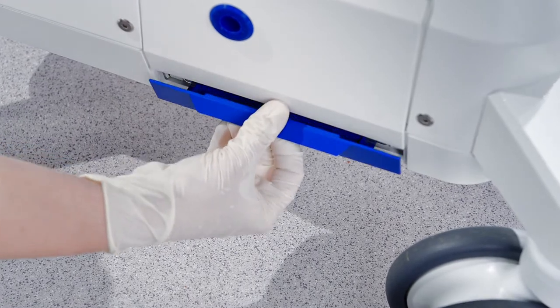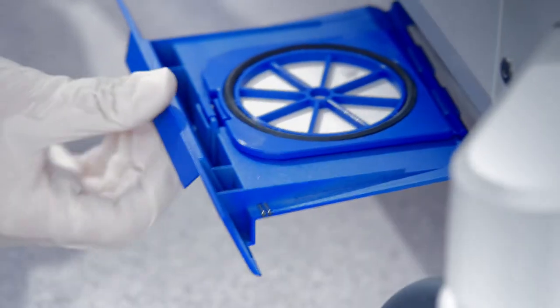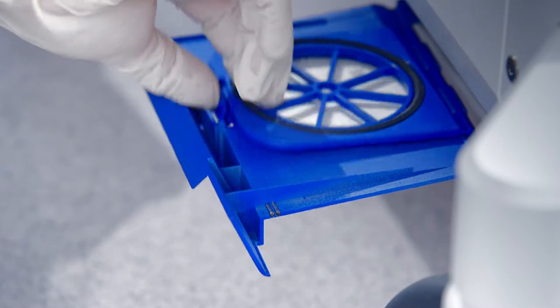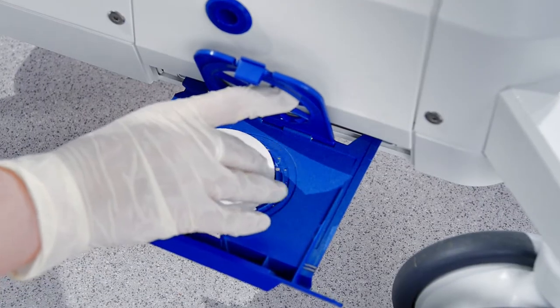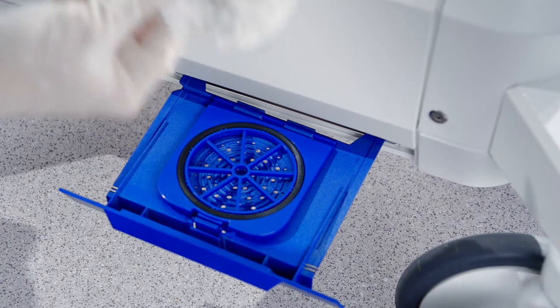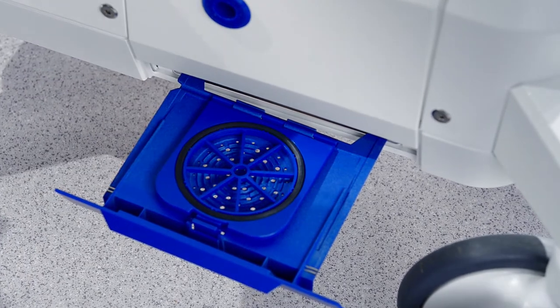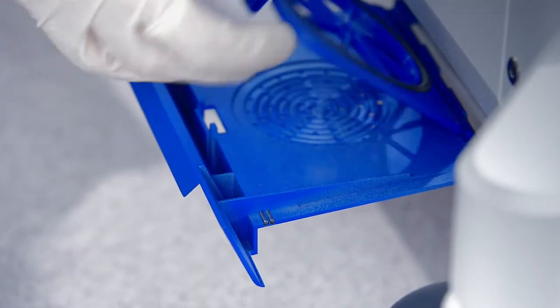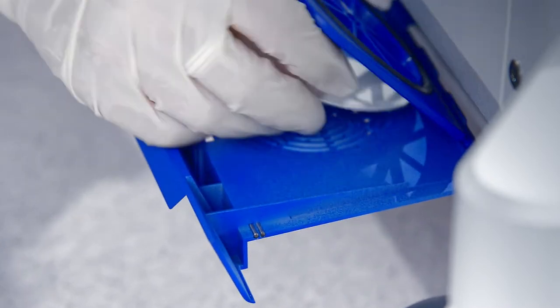Check vacuum components by starting from the filter paper. Check at the bottom of the modular vacuum pump if the filter paper is new. Open the cassette and pull the flap forward. Exchange the old filter paper for a new one, close it, and push it back to start position.